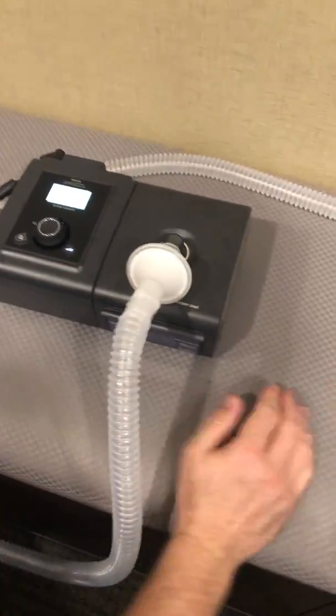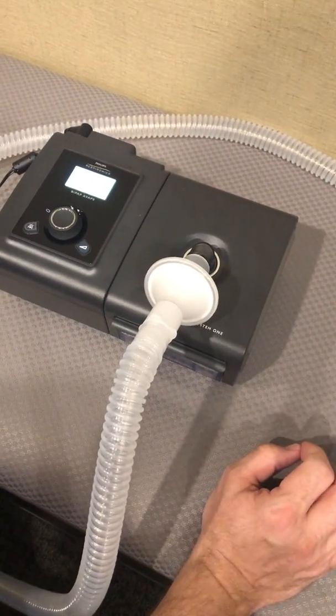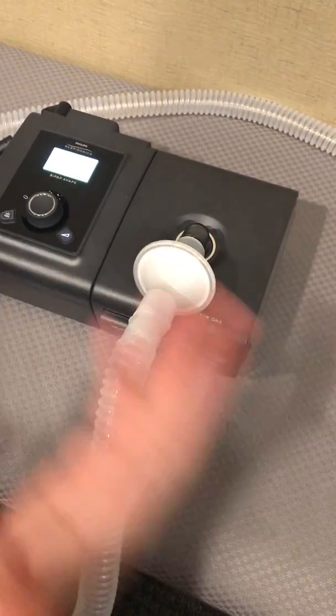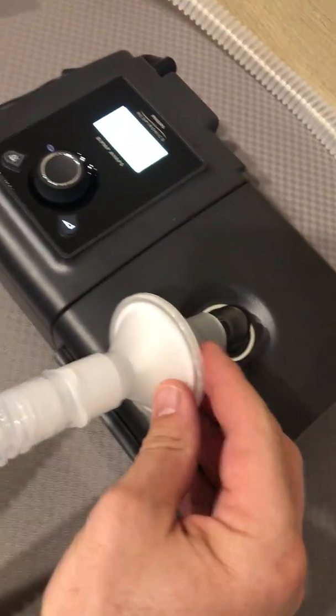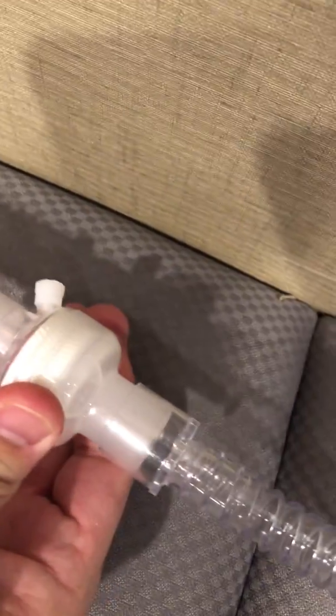We had to be somewhat creative in our circuit to set this up on an invasively ventilated patient. I'm going to demonstrate what we have in line — it's what we would call a passive circuit. We have a bacteria filter, a passive six-foot BiPAP/CPAP circuit standard with an exhalation port, also called a whisper swivel, which is just a standard exhalation device in line. This is an HME — heat moisture exchanger — that connects to our trach adapter. For demonstration, this is our lung, this is our patient.